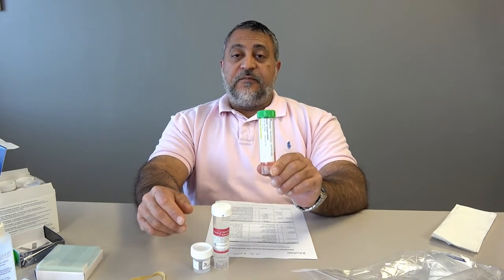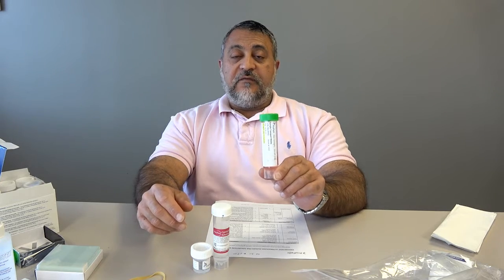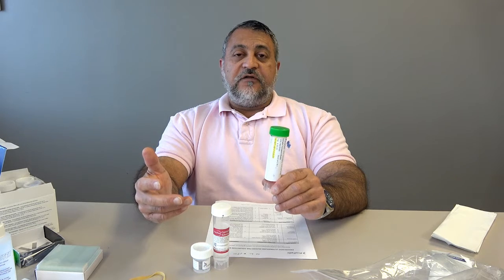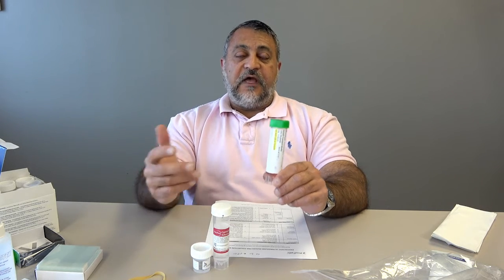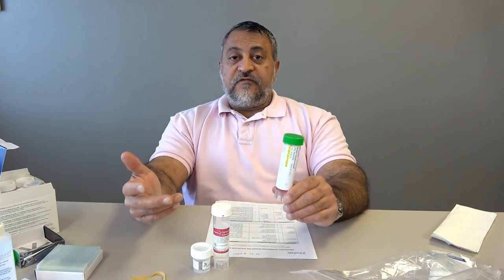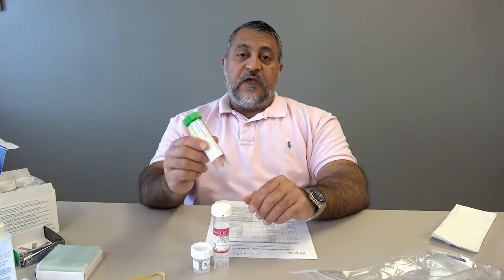For example, if you think the patient might have a lymphoma or maybe a leukemia. And so we include this. Probably not something you're going to run into a whole lot in FNAing the pancreas, but we have seen lymphomas in pancreases. We have seen patients who've had histories of lymphomas who have pancreatic masses. So you may want to do that.